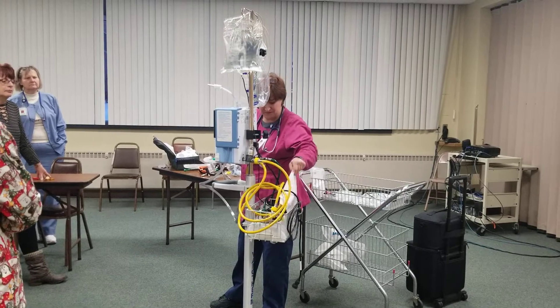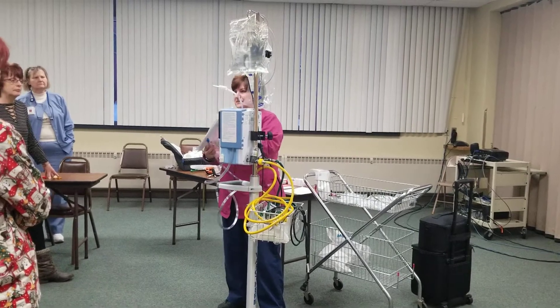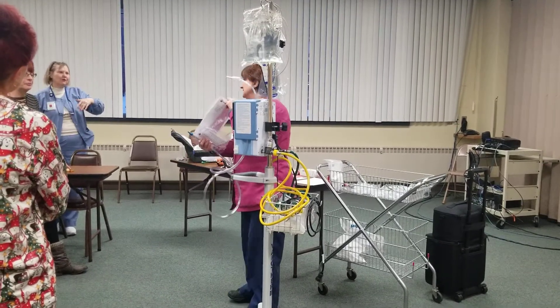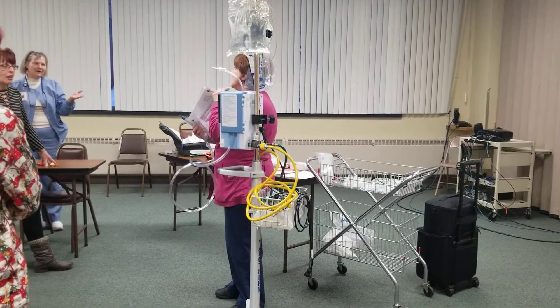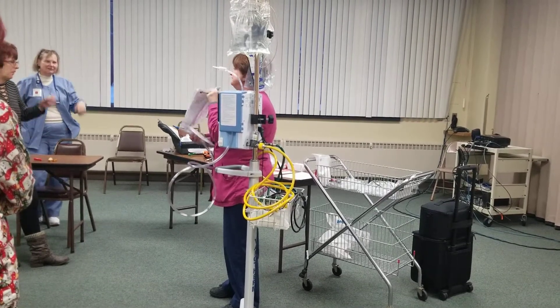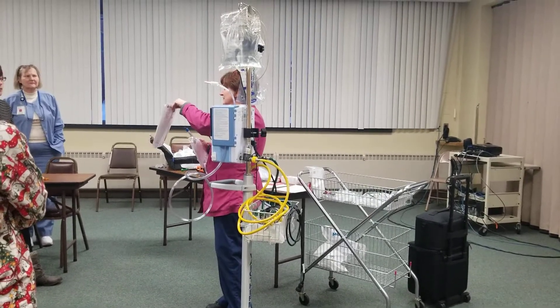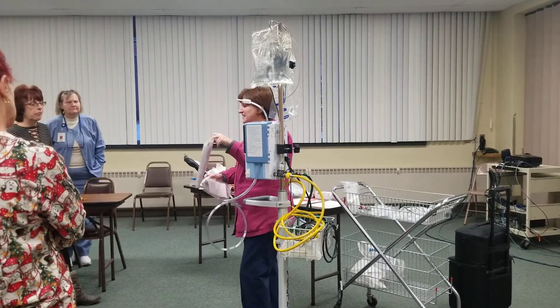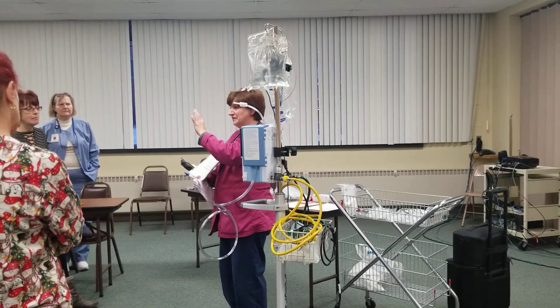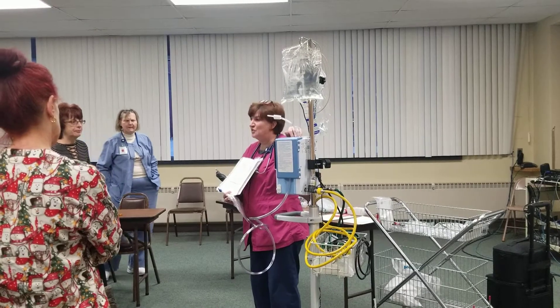What settings do I start them off at? The question is: do you want to start at 40% and work down, or go low and work up? I want you to start high — start at 40%. It'll read 40, 40, and 37°C for the humidity. One thing I see people forgetting is to document the humidity. In that little box it'll say humidity — make sure you document it. This needs to be documented every two hours. It's usually 37.